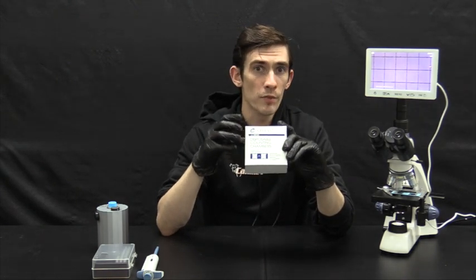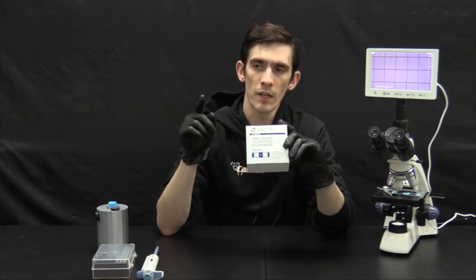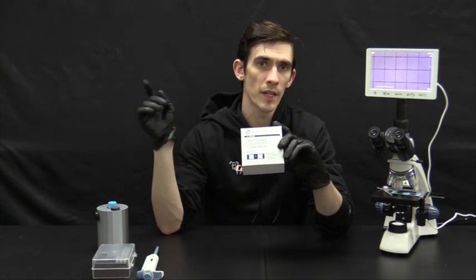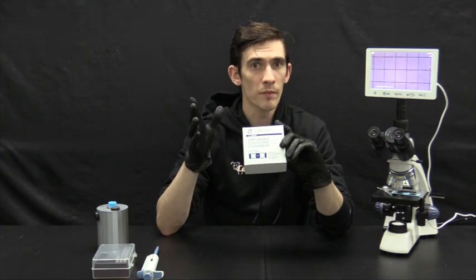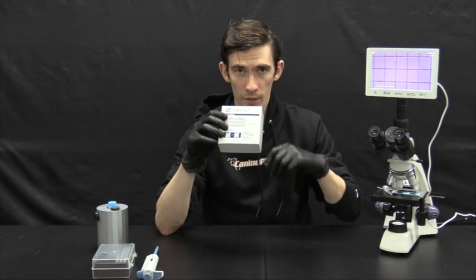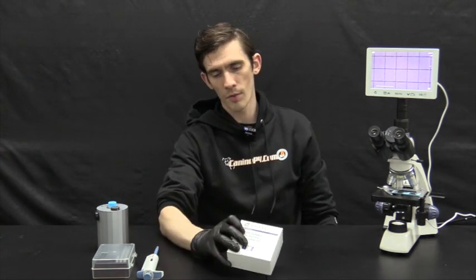It's microscopically gridded, allowing you to count how many sperm are in each grid, count up to 10 grids, do a little bit of very basic math, and arrive at a good estimation of his total concentration.